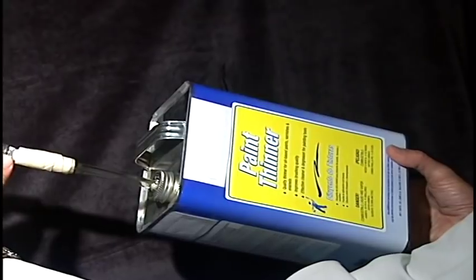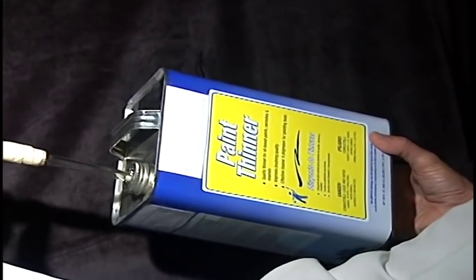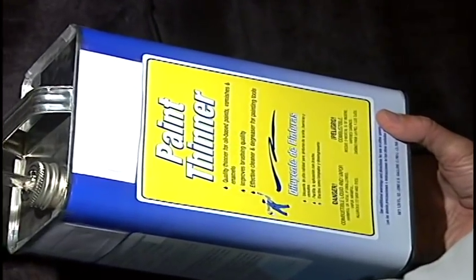Now I'm going to close the valve on the suction machine and I want you to watch the power of the suction machine on this can.